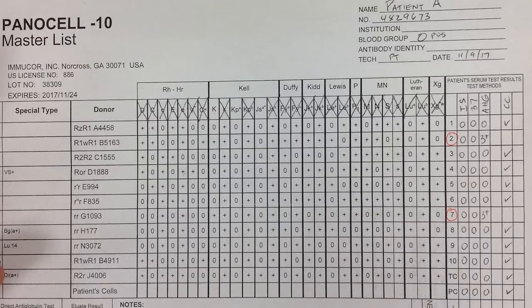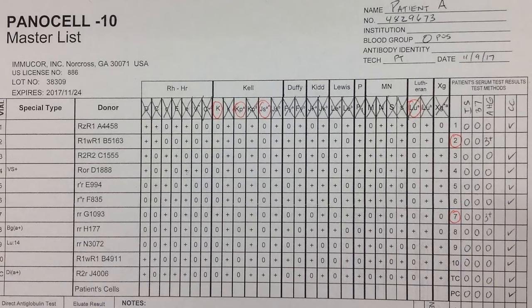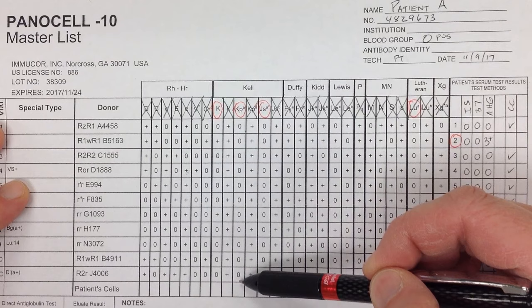Now I take my red pen and circle what is left. We have Kel, KPA, JSA, and Lutheran A. Let's talk about the ones that are left over. KPA is an extremely low-incidence antigen — in fact, it's completely zero with no positive cells anywhere in this panel. So I'm going to go ahead and cross that off.